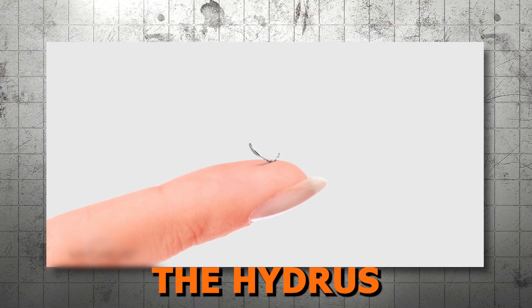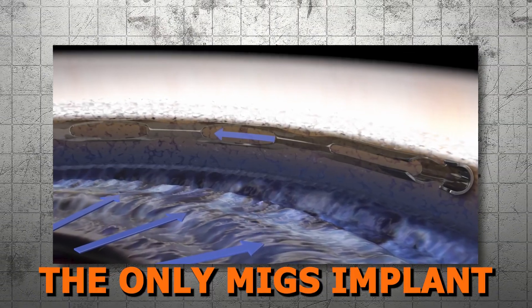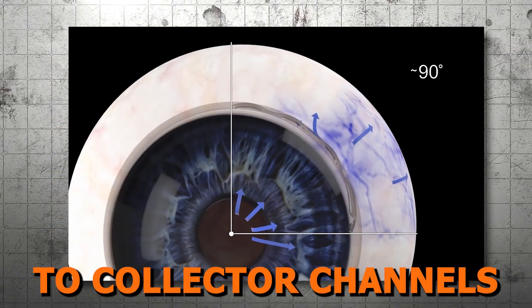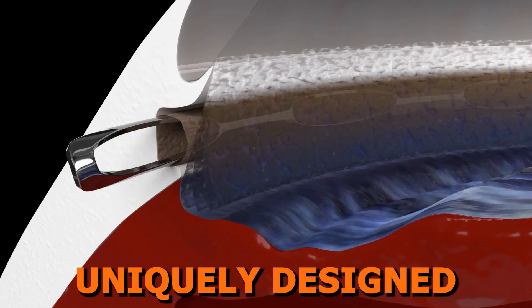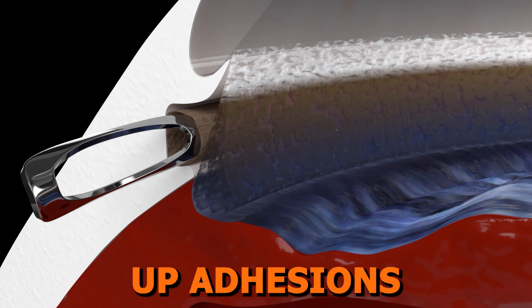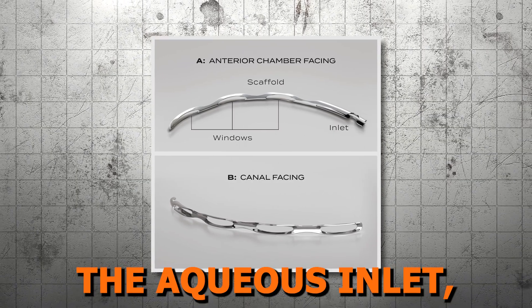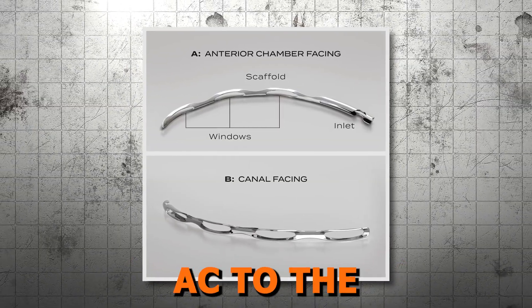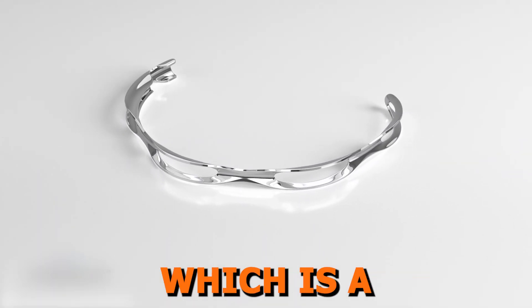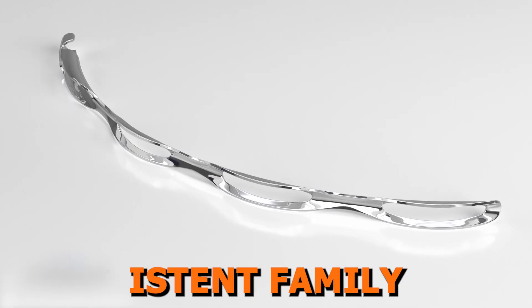Next, we have the Hydrus Microstent, which is roughly the size of an eyelash, and it's unique in its design, being the only MIGS implant to span approximately 90 degrees of Schlemm's canal. This ensures access to collector channels in the nasal region. It is also uniquely designed with an open window scaffold to also dilate Schlemm's canal. It can also break up adhesions and provide outflow pathways for aqueous without obstructing the collector channels. The aqueous inlet helps direct flow from the AC to Schlemm's canal, bypassing the trabecular meshwork. The device is made of nitinol, which is highly flexible and biocompatible and also MR conditional, similar to the iStent family of devices.